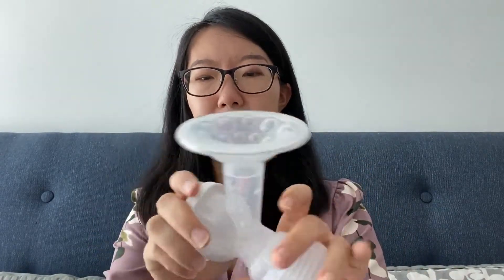Now I want to show how I use the Baby Buddha and how I use it with different pump accessories. The first is what it comes with in the package. The Baby Buddha pump only has one flange size. It does have this silicone massager — once you put it on, it makes the flange size 24 millimeters. Then it has this cap, these membranes which are a special type, and this duckbill as well. This part fits with wide-neck bottles, so in total it has five parts.